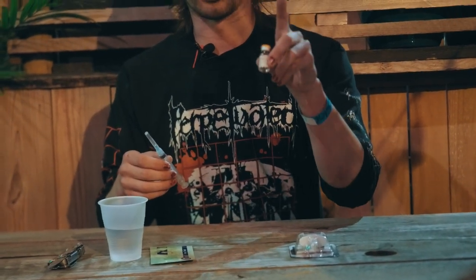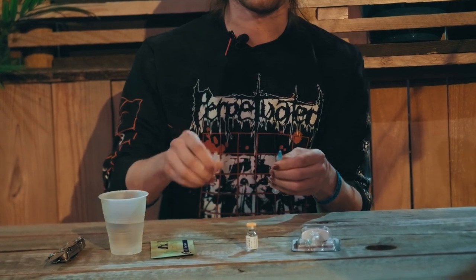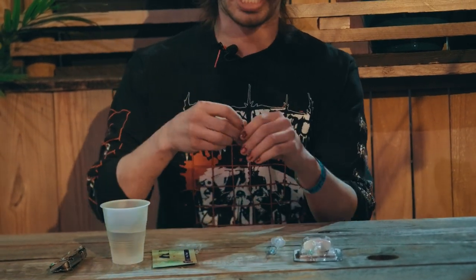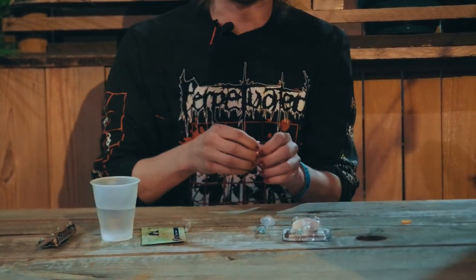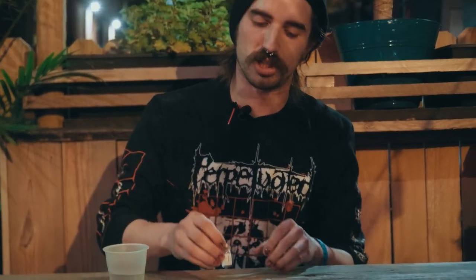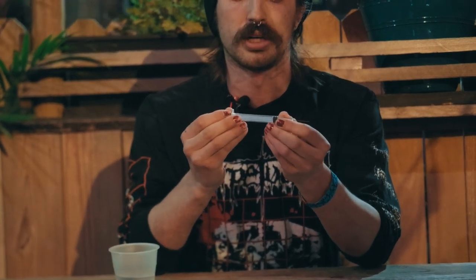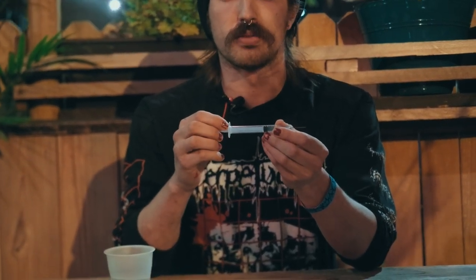First, we're going to learn how to use the intramuscular method. You need your syringe and your vial of naloxone. First step: pop the top off your syringe and rip the orange cap off the naloxone. You'll see there's a little rubber black hole — that's where you're going to put the syringe in. When drawing the naloxone out of the vial, it's a lot more helpful to tilt it almost at a horizontal angle.